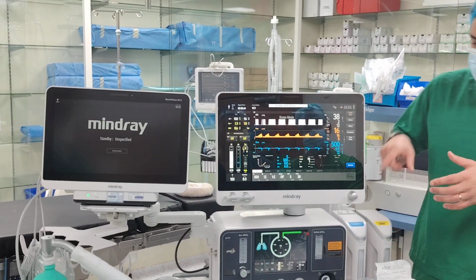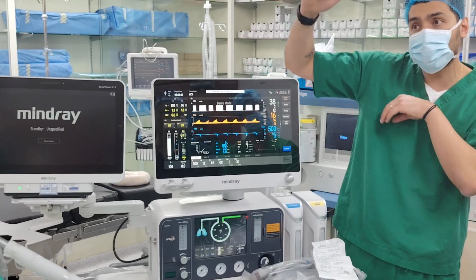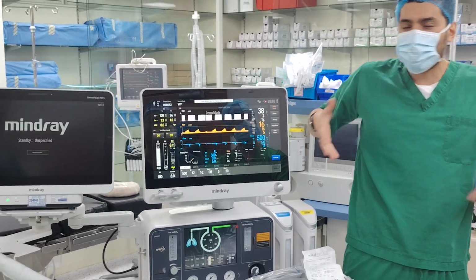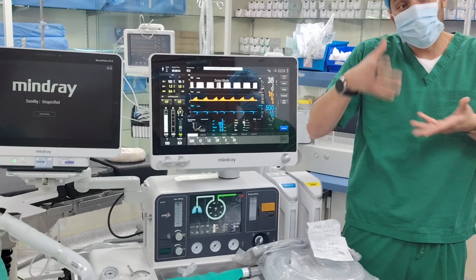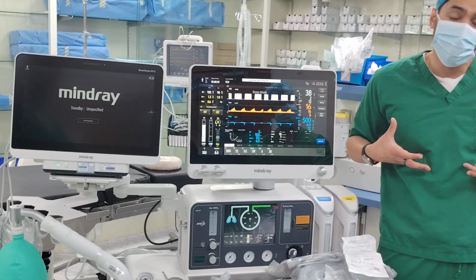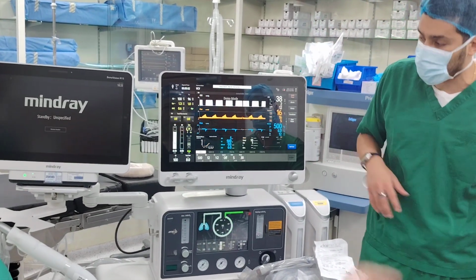You understand? Because driving pressure is what? It's the difference between plateau pressure and PEEP, which is the volume that has been given, right? 15, if you think 15 for an obese patient is very low. But if the obese patient's lungs are opened because of good PEEP, good lung recruitment, you don't need more than 15. All right, this is the principle.